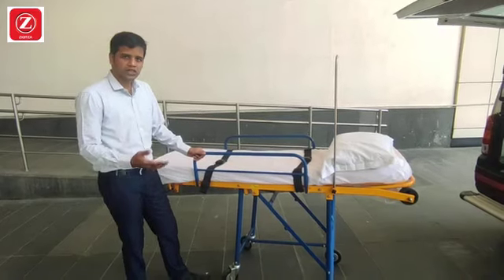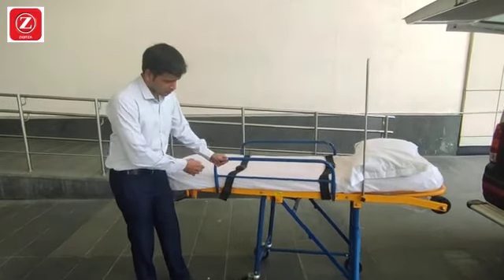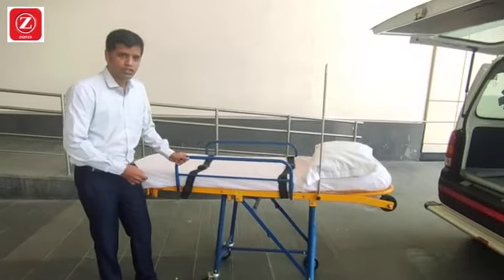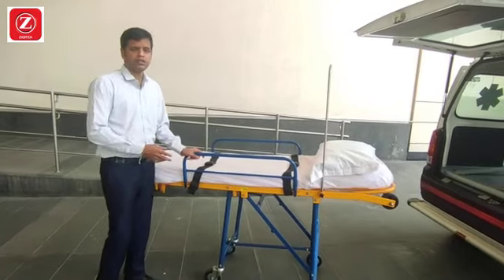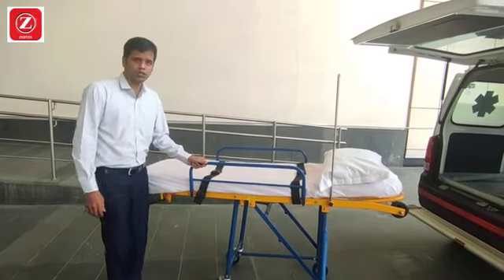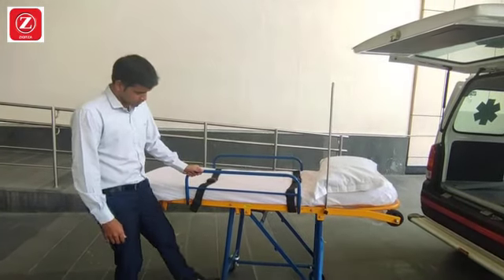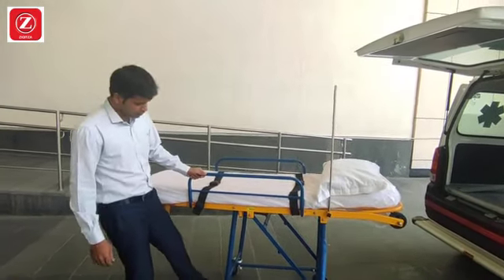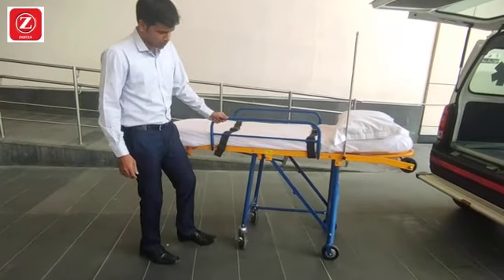Now we will learn some parts of the stretcher. When the stretcher is in position, the stretcher's locks will be made on the wheels.